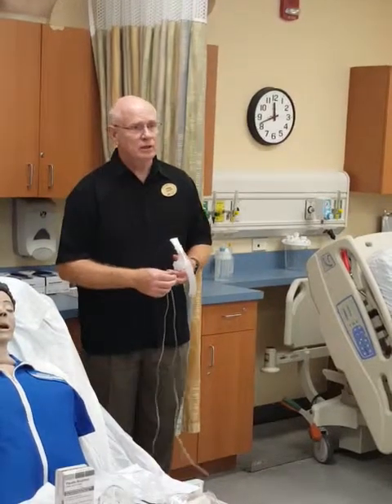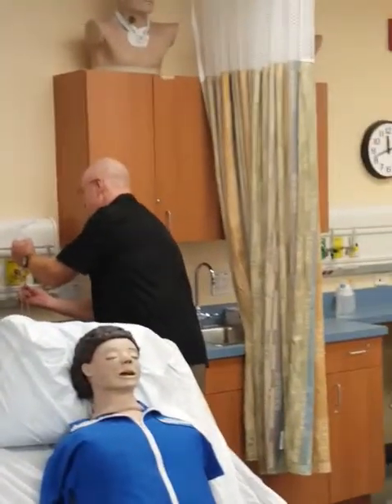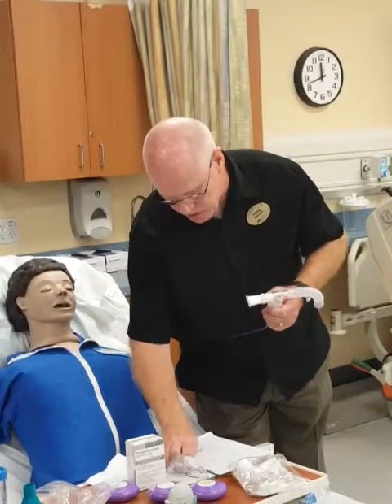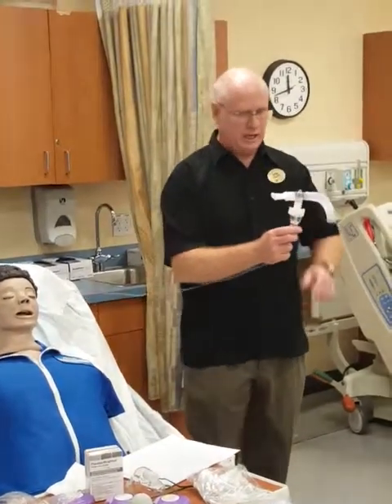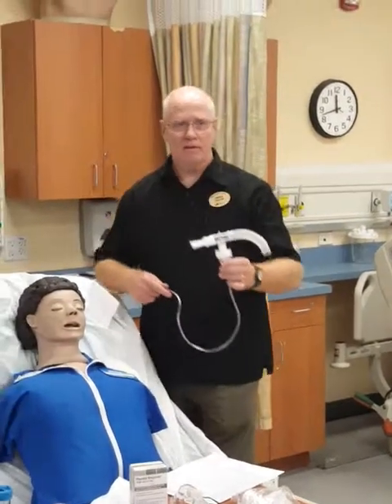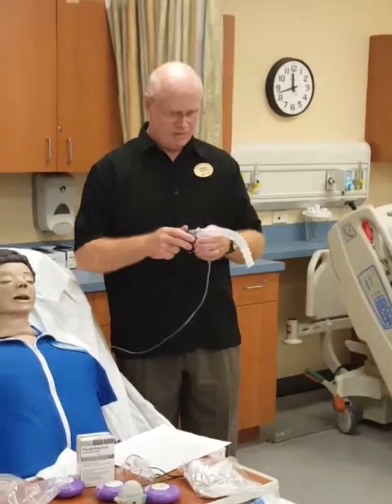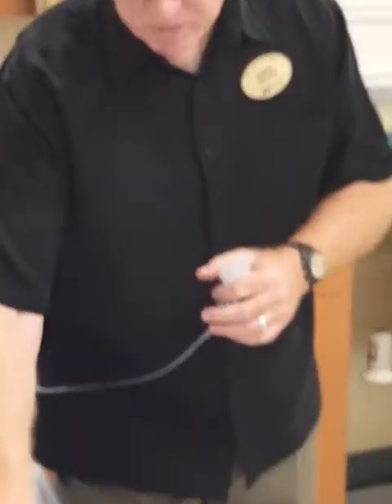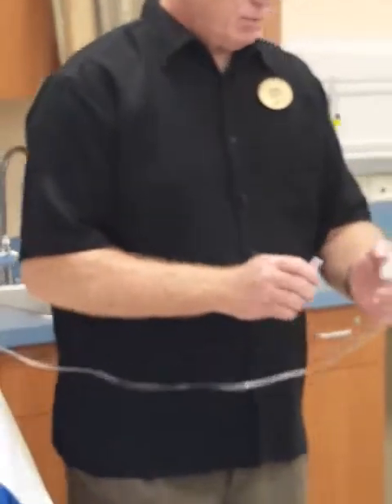If the patient has an oxygen mask on, you're going to have to drive this thing with oxygen. So we'll hook it up — I'm just going to hook it up to air here and put my medicine in. Let's walk through these steps. During the practicum, all you have to do is assemble this thing and show your instructor — because we see all kinds of weird assembly configurations. You assemble it right, show your instructor, they give you the thumbs up, and then you're going to wind up giving it with an aerosol mask.